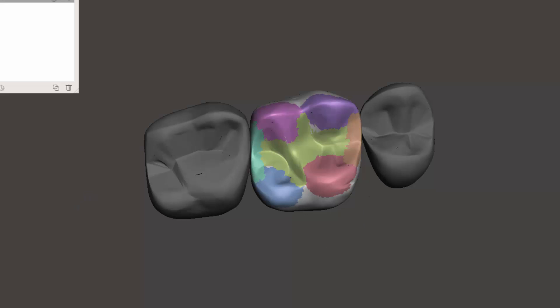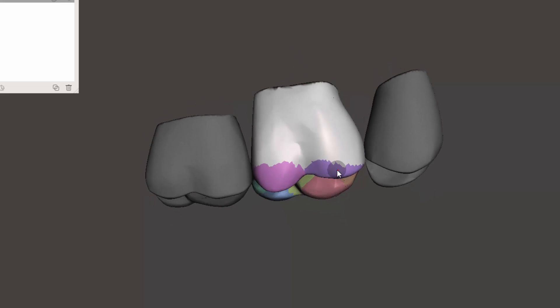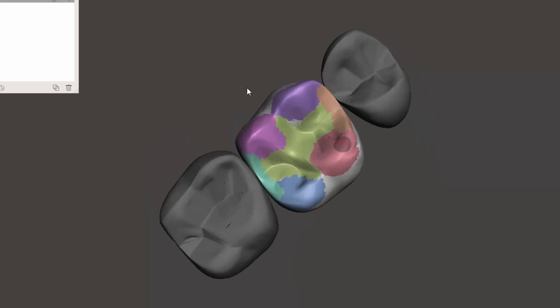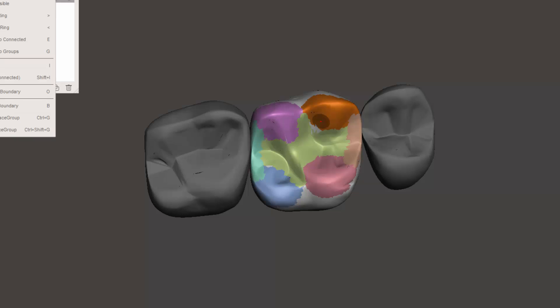So now we can go over here. Well, first we can hit select again, and say we're going to move this cusp because we need to have this really pointed cusp because that's just the anatomy that patient has or we want to match it. So if we double click here, it's going to highlight the entire face group, and then we can come over to Deform and hit Soft Transform, or Shift+T.